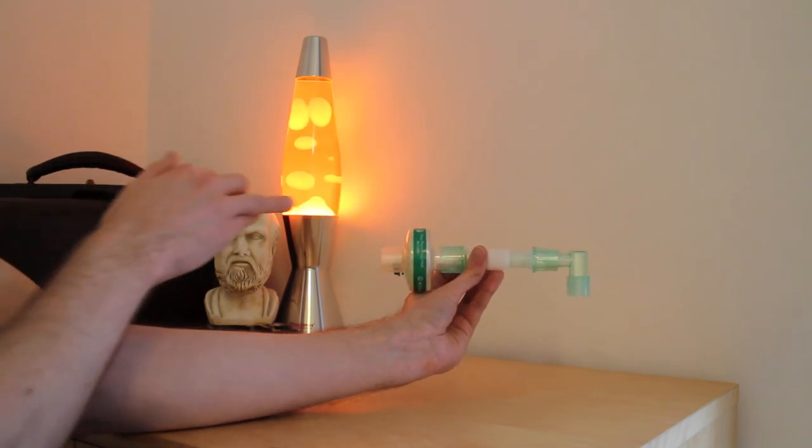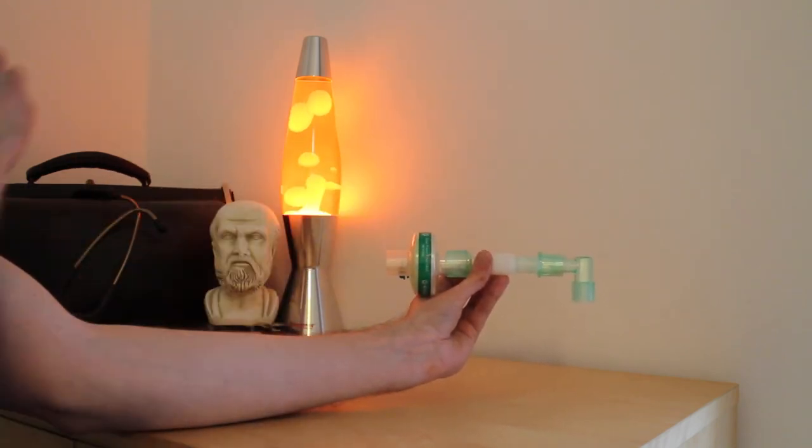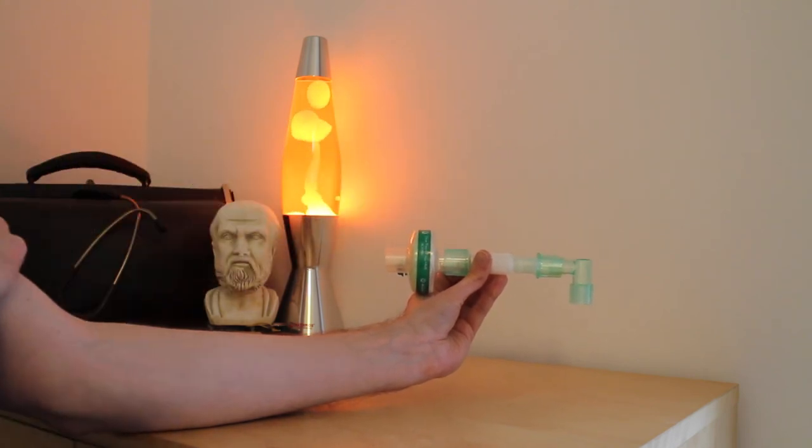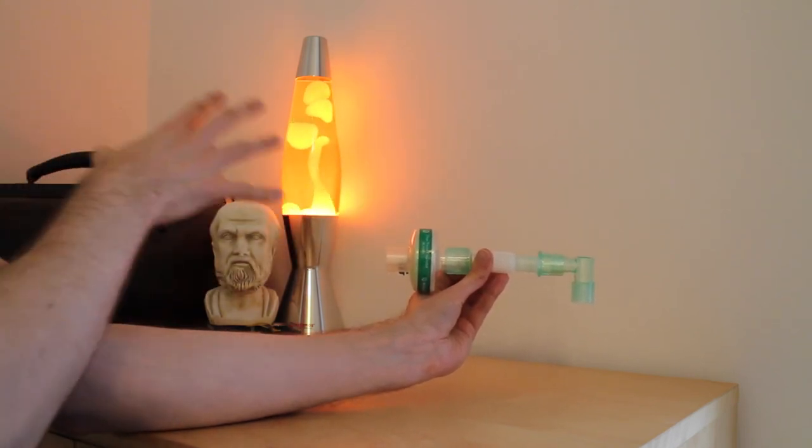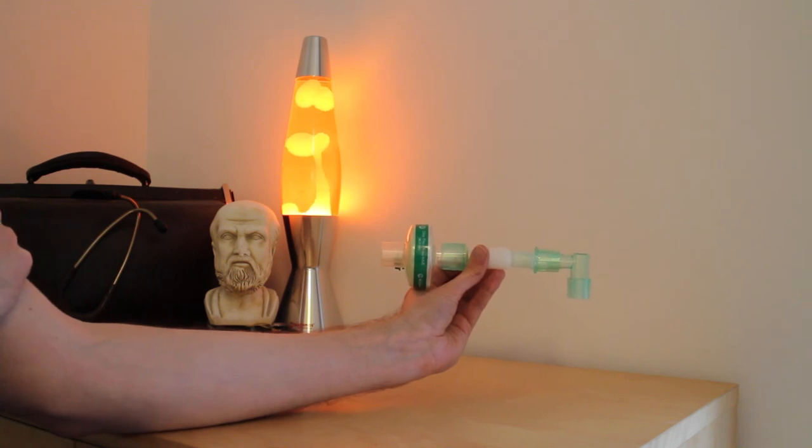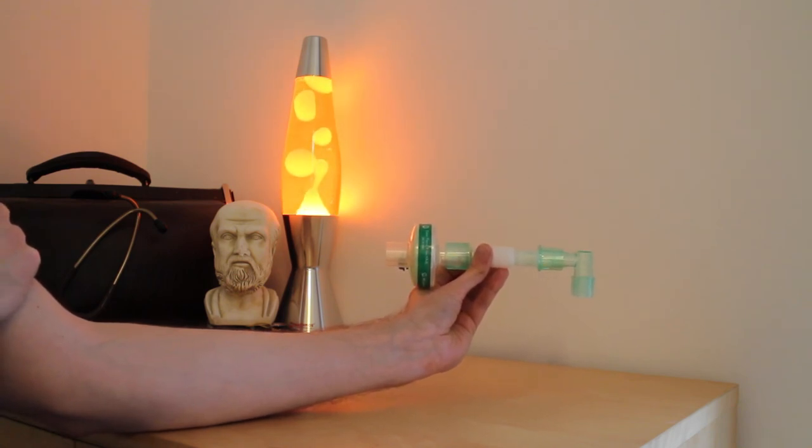In summary, this is a catheter mount and filter. It is used to connect a manually or mechanically ventilated patient to an oxygen supply during operative procedures under general anaesthesia.